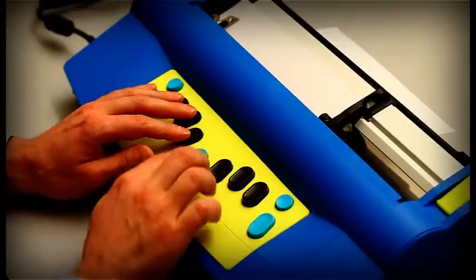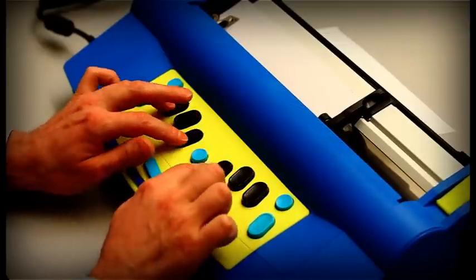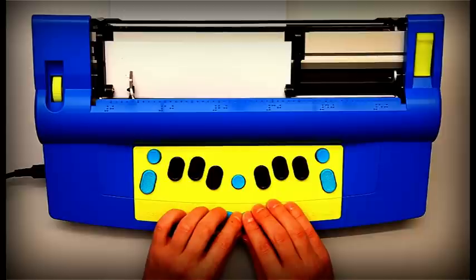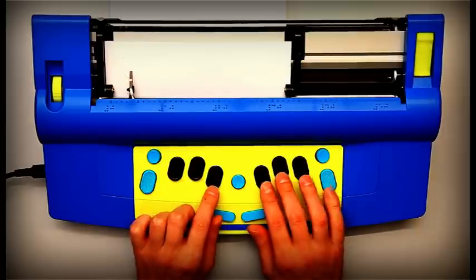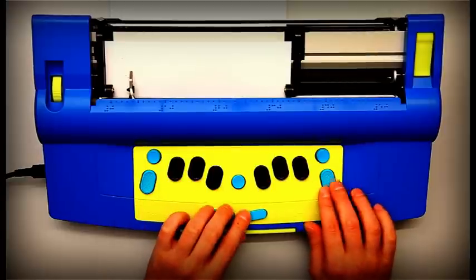Some commands like EM for embossing are toggle commands, meaning that they toggle between on and off each time they are invoked. Command EM off.